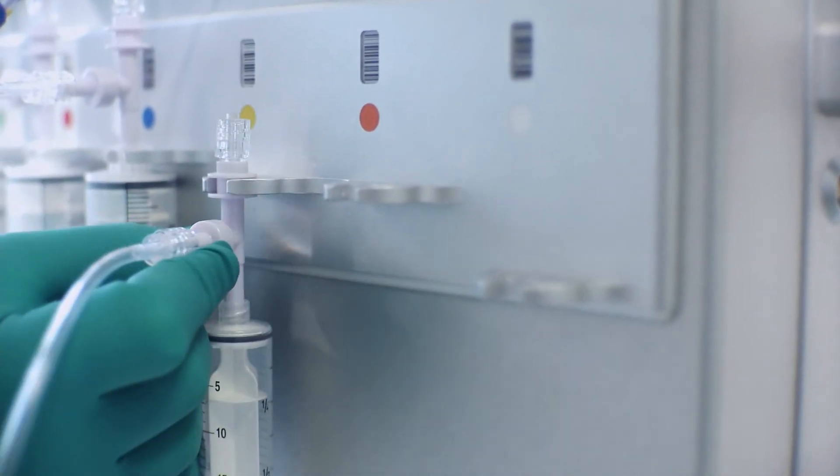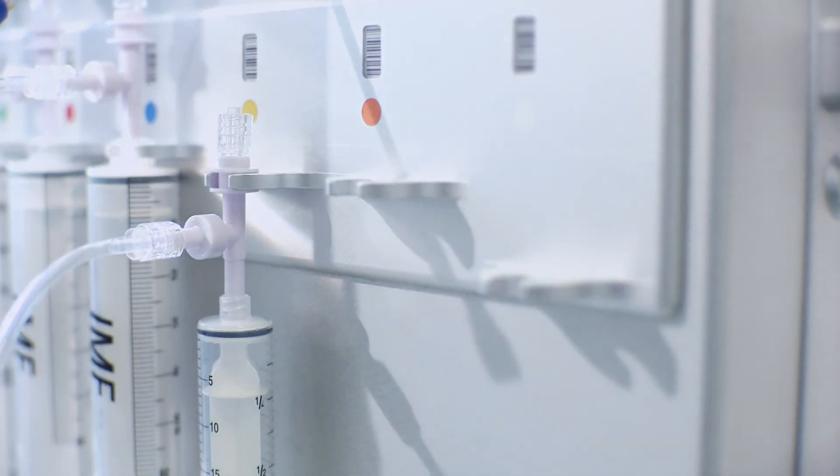Smaller syringes connect onto the machine in a different way. Place the top bearing followed by bottom plunger and rotate by 90 degrees, making sure the inlet is perpendicular to the machine.